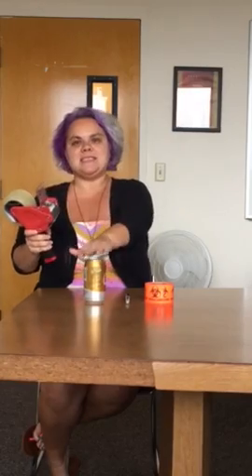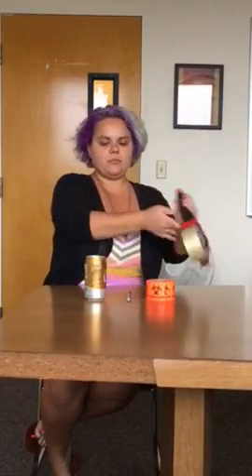For a container that has an opening like this, you're going to use tape or some other item to seal it closed. Then you're going to mark it with either a biohazard sticker or with a pen and mark the container as biohazard. Then this container can go into the rubbish.